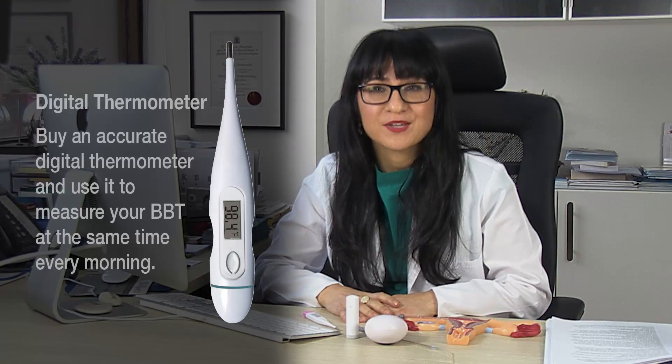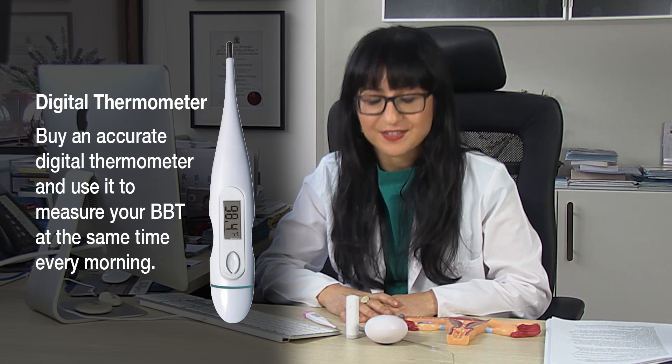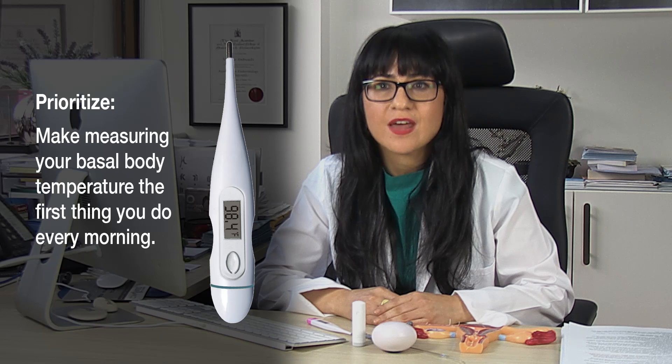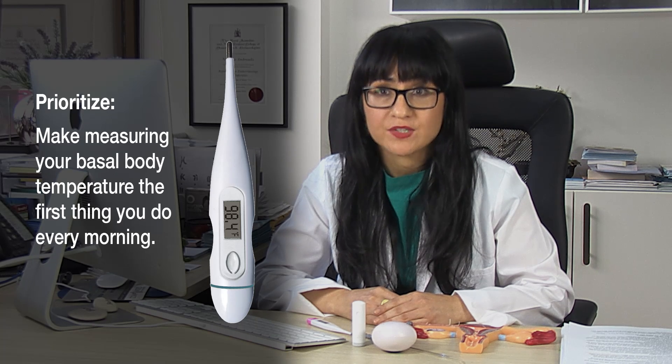The best way to measure your basal body temperature is to buy an accurate digital thermometer — here's one I prepared earlier. When you wake up in the morning it's really important that you do nothing first but measure your body temperature. It's literally turning to the side of your bed, picking up your thermometer, and putting it in your mouth.